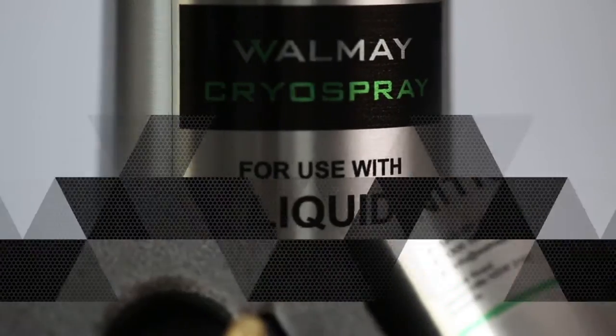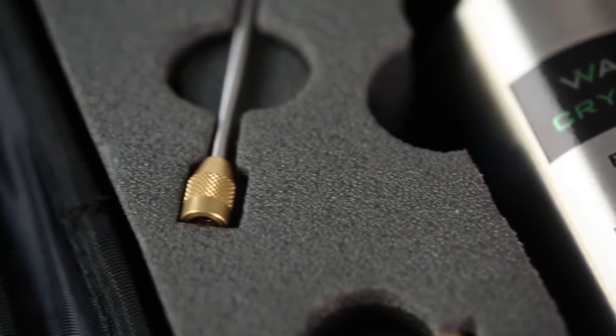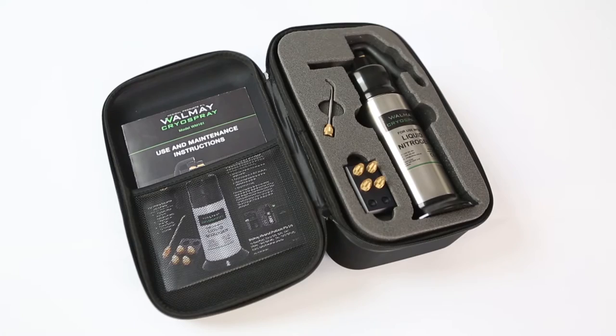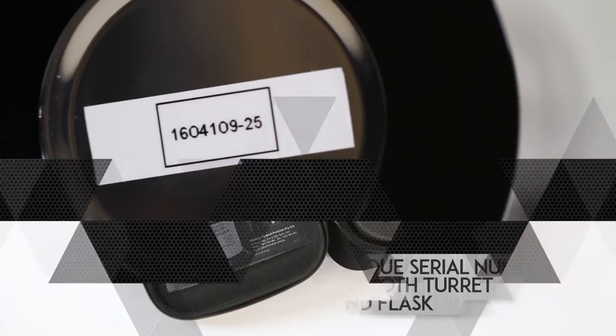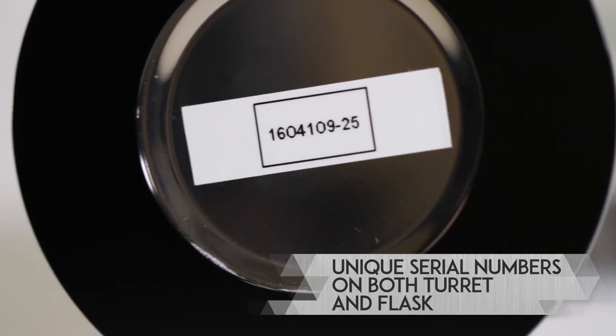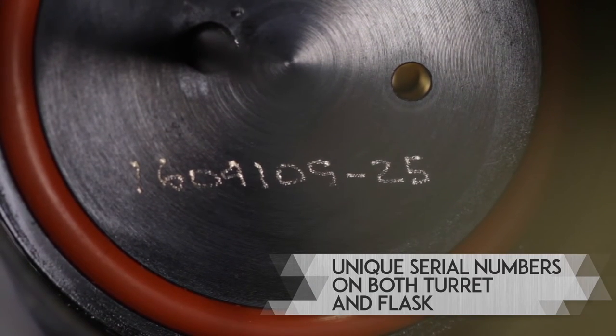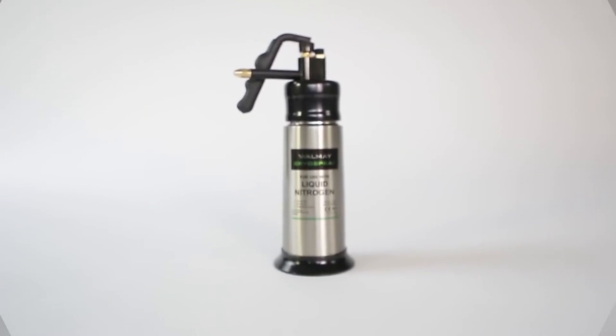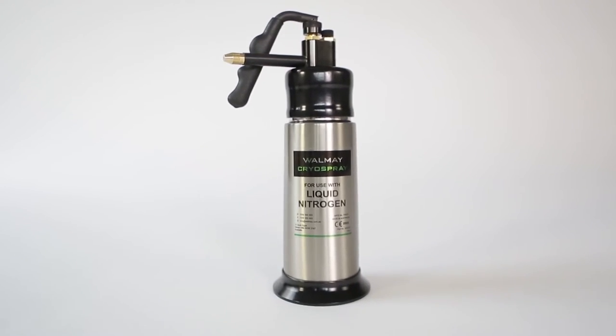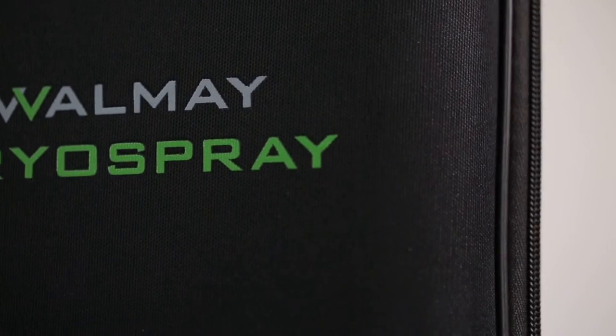Please ensure all pieces are separated and placed back in the kit for future use. If you follow these directions carefully, the Walmay Cryo Spray will give years of trouble-free service.